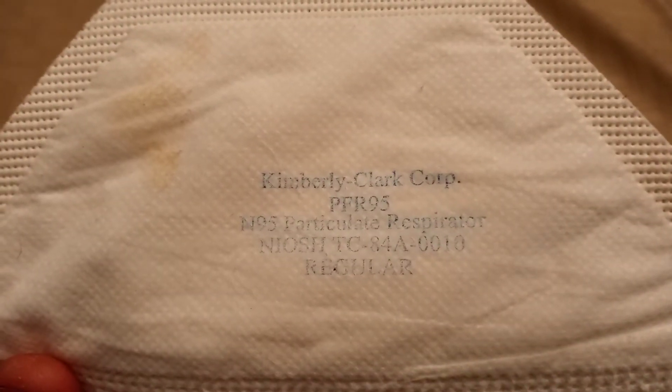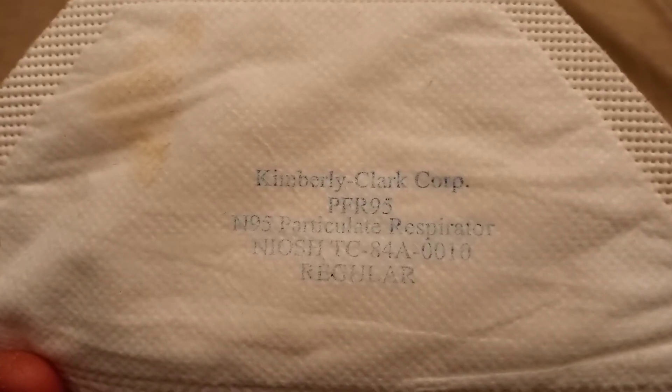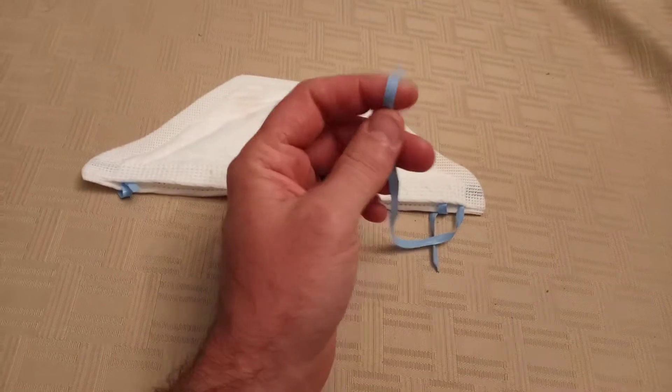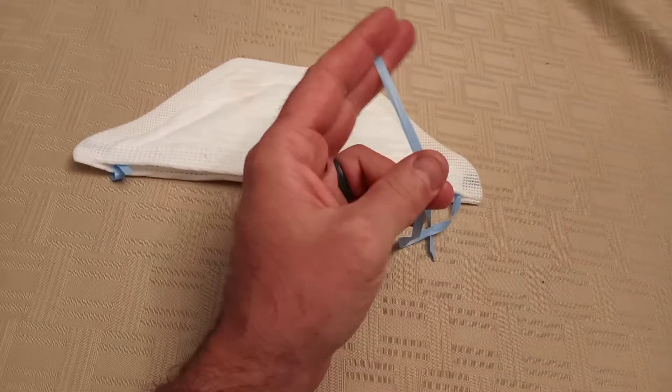I don't know what they're called. Kimberly Clark Corp PFR95 mask. Been worn a couple times. You can see we had these in storage for a while, and the little blue strap is just nothing. Gone.